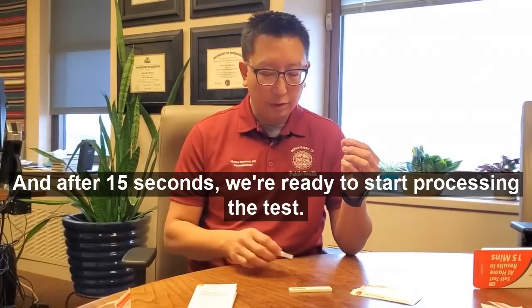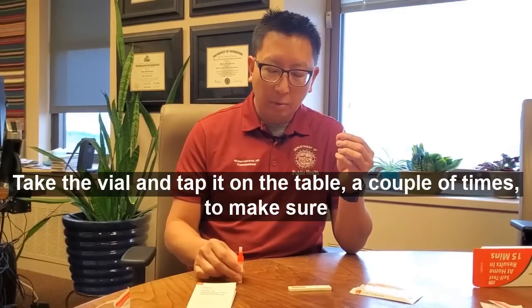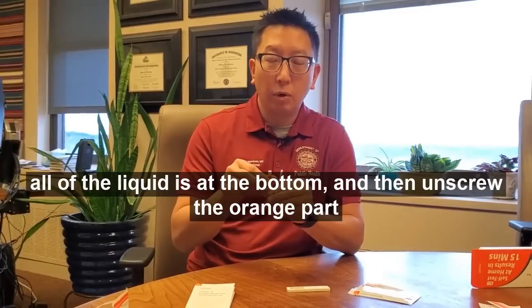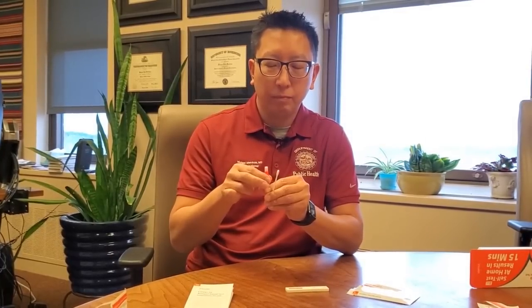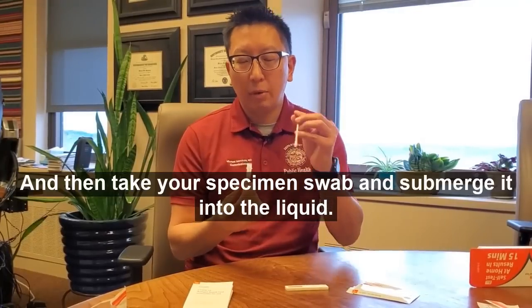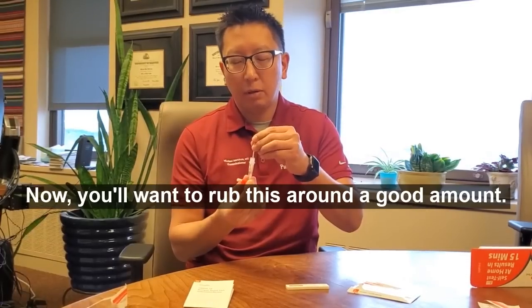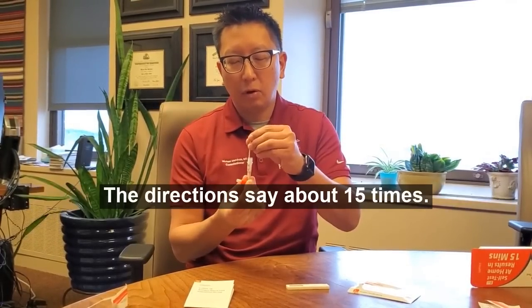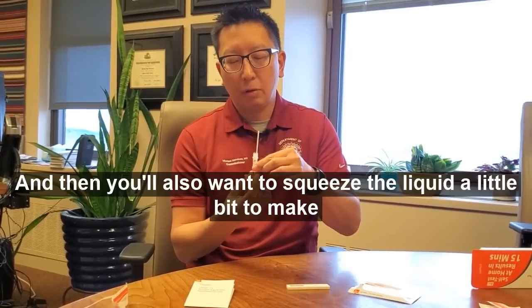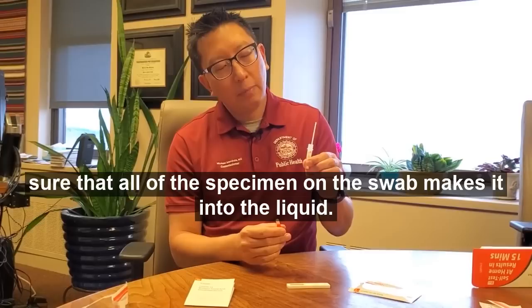After 15 seconds, you're ready to start processing the test. Take the vial and tap it on the table a couple of times to make sure all of the liquid is at the bottom. Then unscrew the orange part of the vial. Take your specimen swab and submerge it into the liquid. Rub it around a good amount — the directions say about 15 times. Then squeeze the liquid a little bit to make sure all of the specimen on the swab makes it into the liquid.